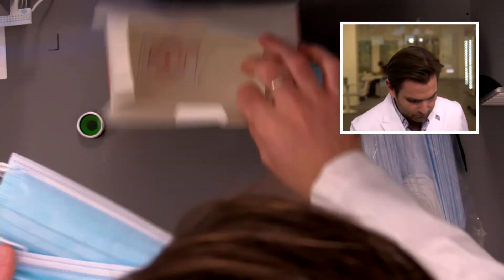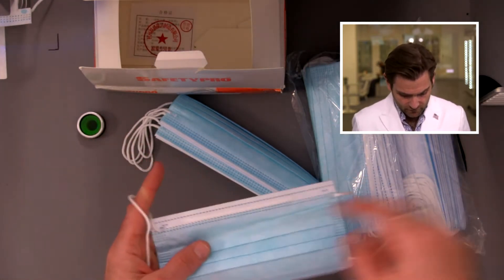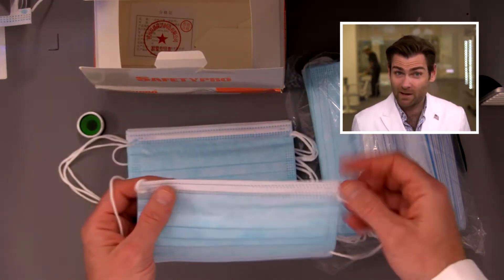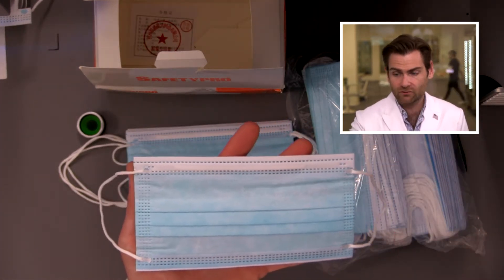It's not fully sealed — I don't love that. Let's take a couple of these out. This is a basic blue mask; I think these were available late last year. These are very poorly put together — the nose wire is not centered in many of them. These were pandemic masks, they were just trying to get things out. The four-point seams are uneven, which is a sign the manufacturer wasn't paying close attention. The ear loops are really thin — I thought it wasn't going to hold, but wow, that is really strong.